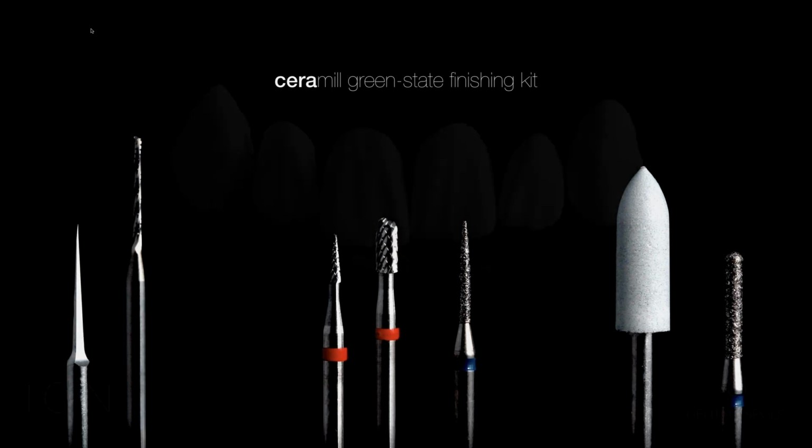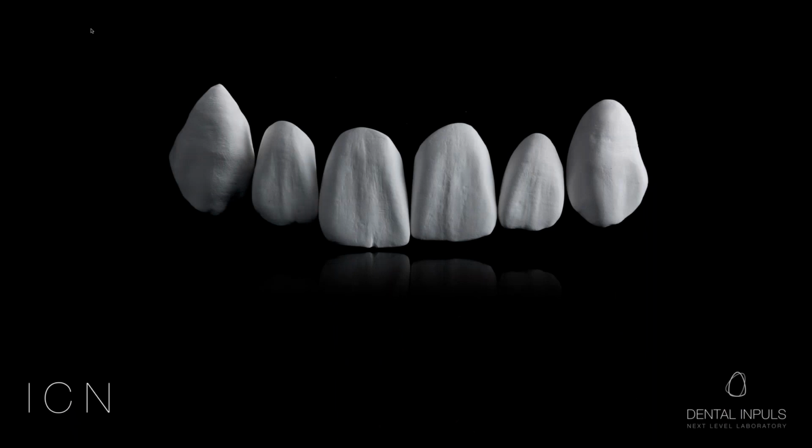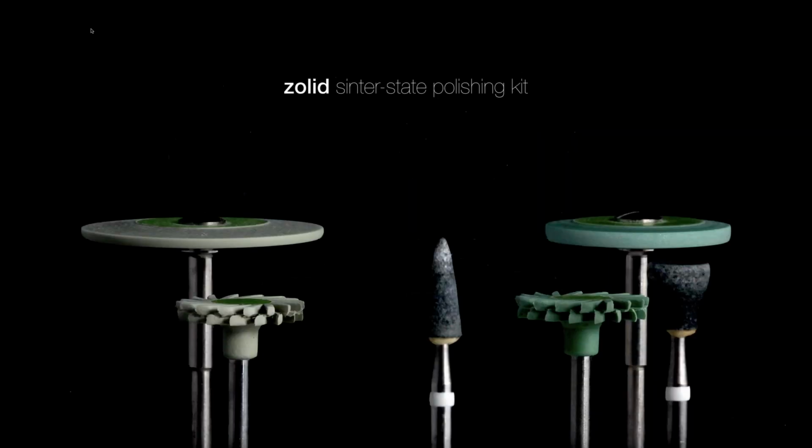So this is how the crowns look after manual rework, and they are ready for sintering. This is the final result. So minor rework is also carried out after sintering.